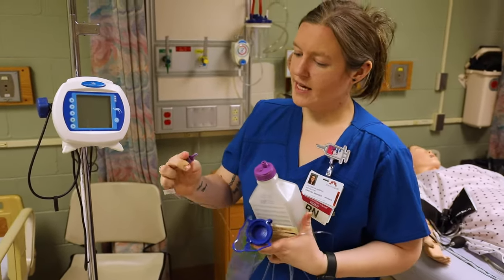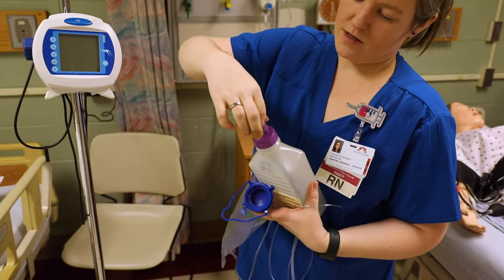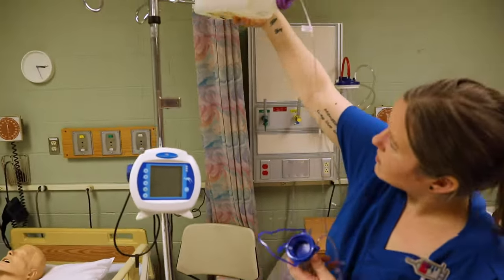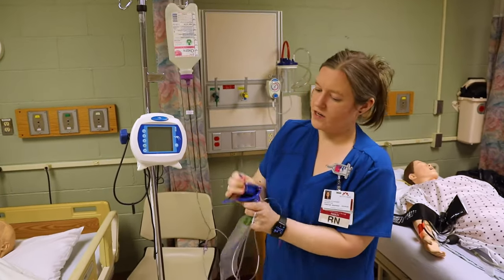These are empty for demonstration purposes only, but I would take the spike and insert it right into the formula and spin it to get it nice and tight.